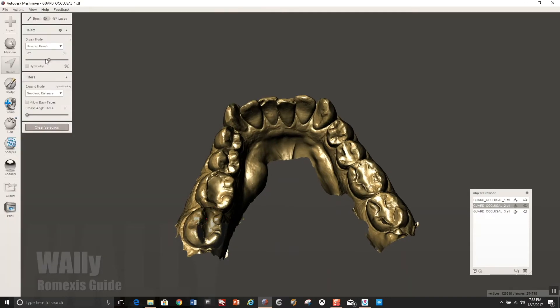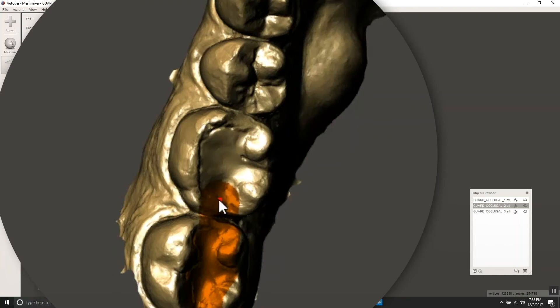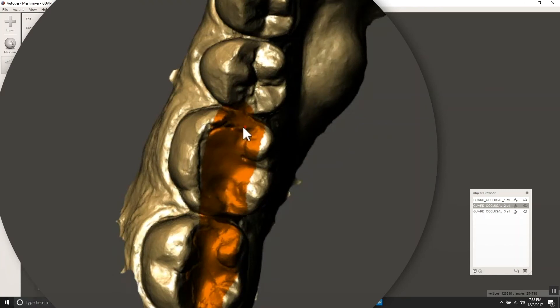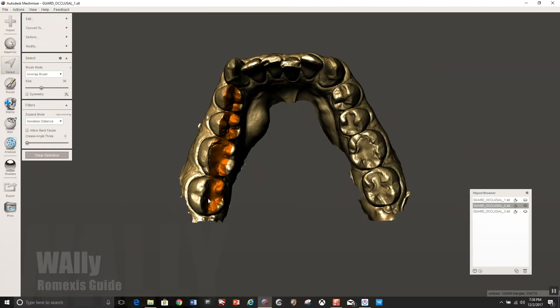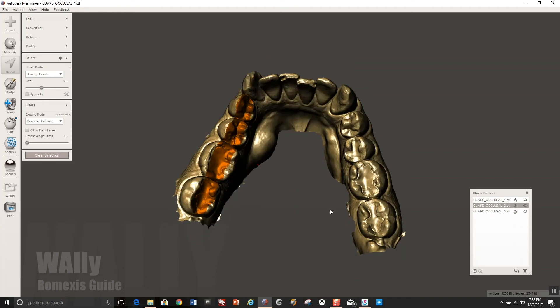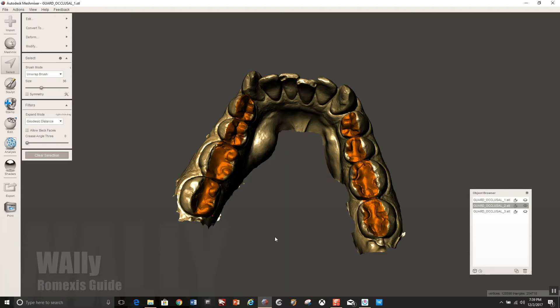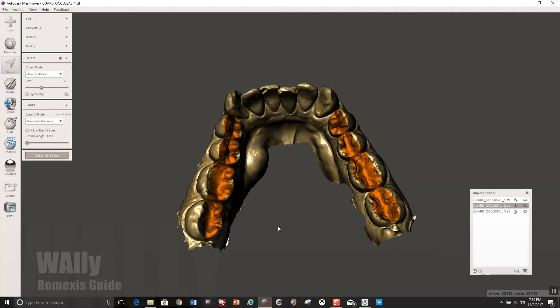So all you do is you select, hit the select icon and you're going to highlight the central groove area and then about three fourths up the inclined planes of the transverse ridges of the cusps. Just avoiding essentially the cusps tips, you can do that on the contralateral side as well. Kind of real quick here. Okay. Once you have that highlighted, you're going to erase and fill in. And what it's going to do is going to create kind of straight lines between the high points of that area.